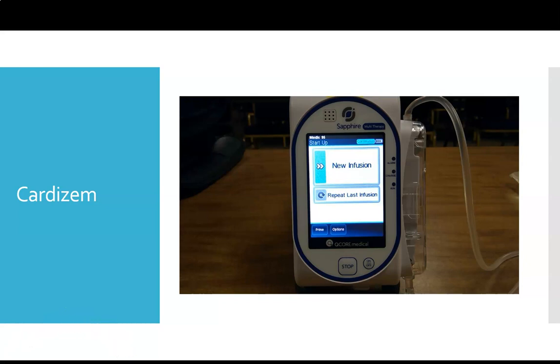And when we set this up, we need to keep in mind that we talked before about the difference between the drips and the boluses. When you're setting up Cardizem, the way you're going to do this is you're going to actually set up both your drip and your bolus at the same time. So when you're on the phone getting your med command orders for Cardizem for your rapid AFib patient, it's really good to discuss both the order for the bolus and the infusion at the same time.